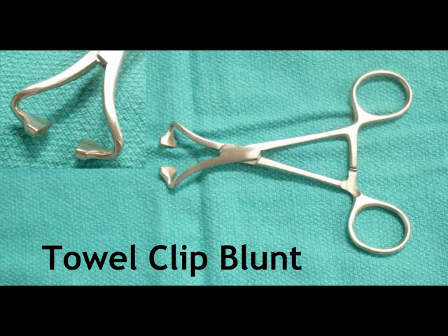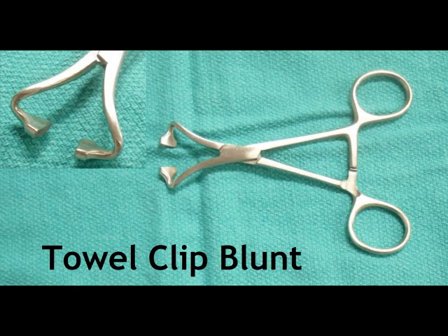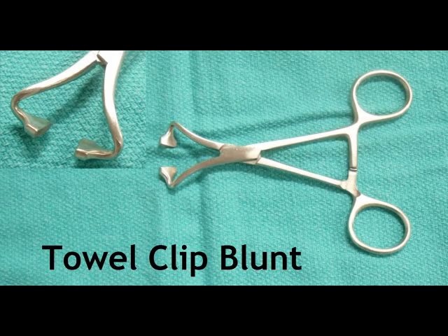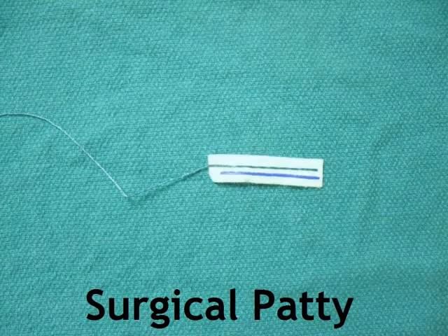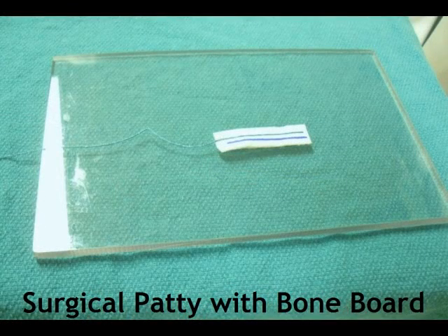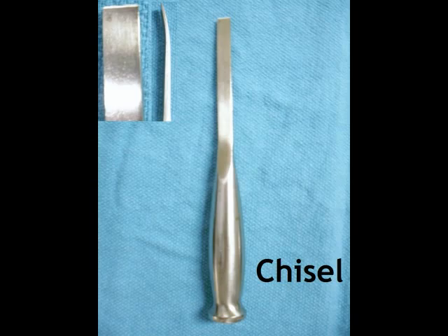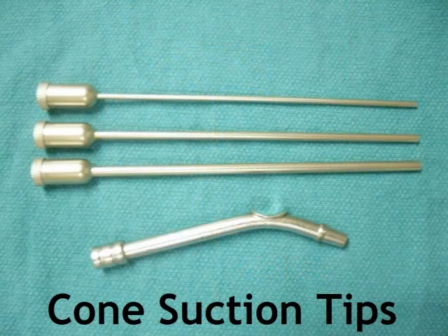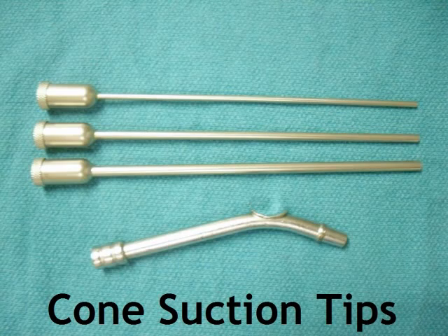Laurie, did I forget anything that is pertinent to most cases? I suppose we should mention patties, sometimes called cottonoids — they come in different shapes and sizes. Chisel, curved or straight. Mallet. Cone suction tips, small, medium, or large.